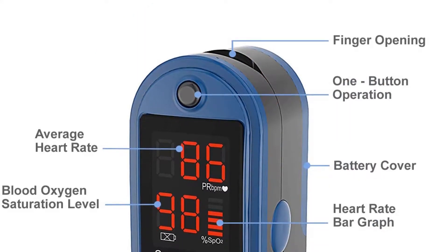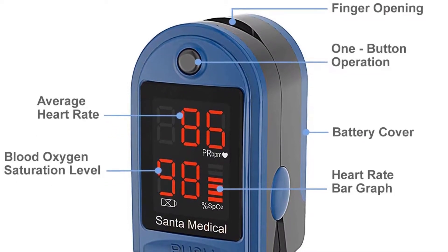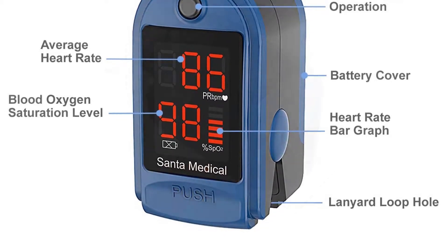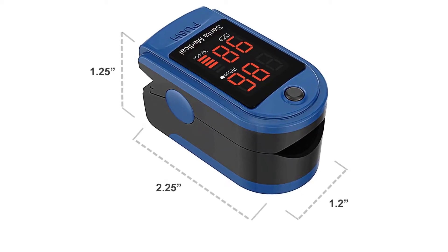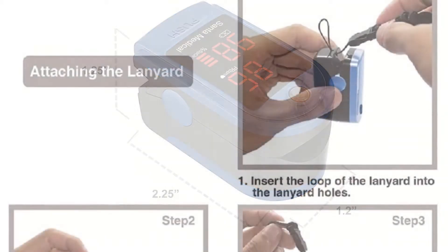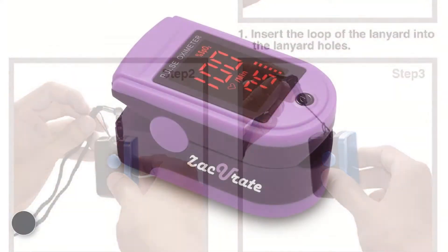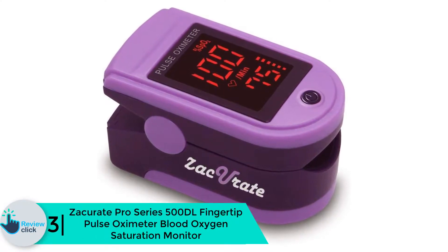Using this device is easy and comfortable. The finger attachment end is safe and doesn't cause pain like some brands. Enhanced with hypoallergenic latex-free material, it's safe for all skin types. Despite its high performance, it uses two triple-A batteries capable of delivering 30 hours of continuous use, with a low battery indicator that alerts you when the charge is running low. It has up to 100% accuracy in determining SpO2, with both graphical and numerical results.